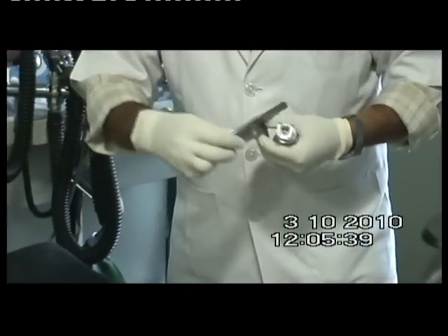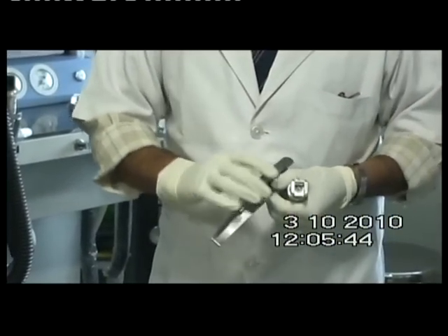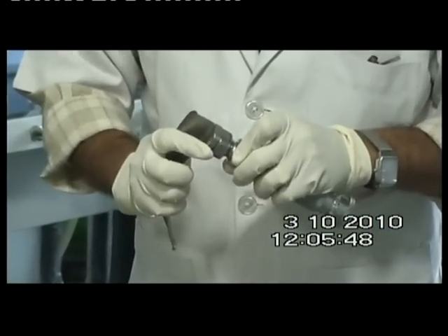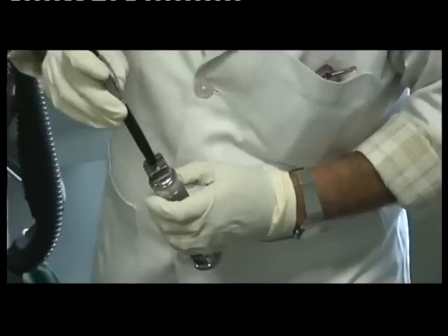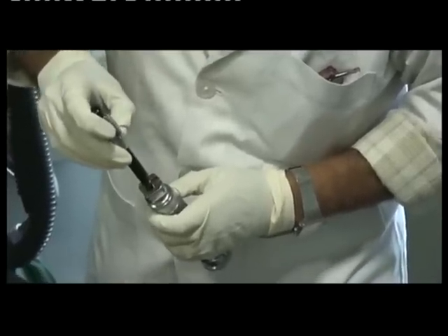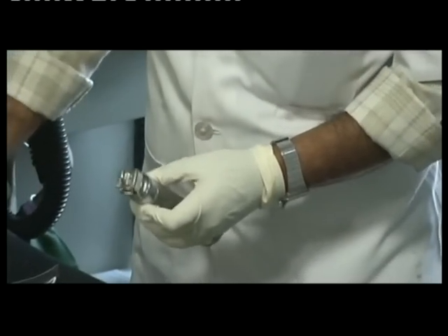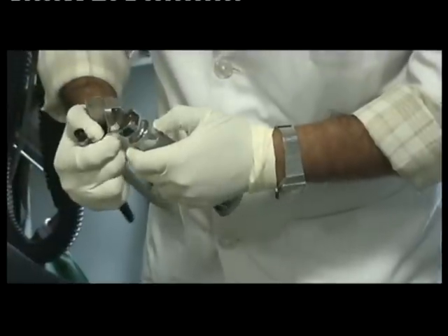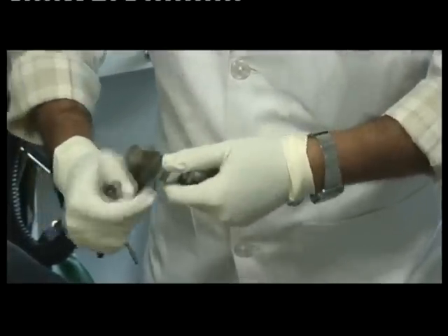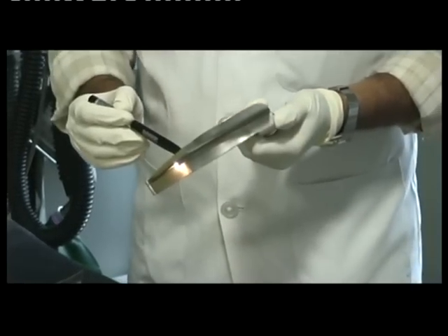This is the bulb and this is the metallic connection which completes the electrical circuit. This is the activator switch which is depressed when we attach the blade. When we attach it, this switch is compressed and it provides a connection between the cells and the bulb.